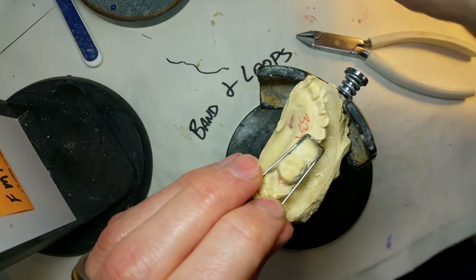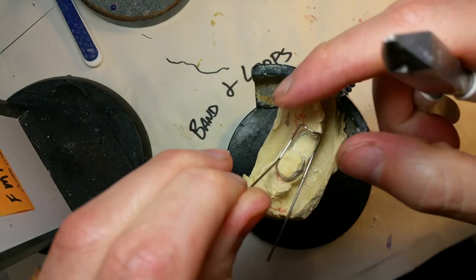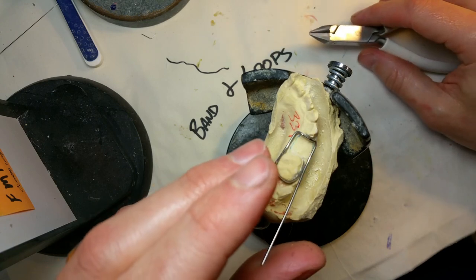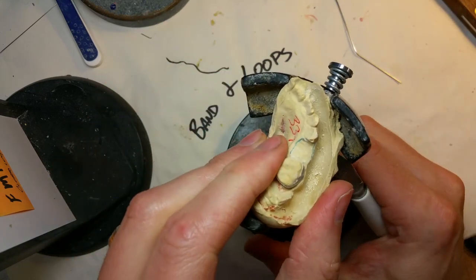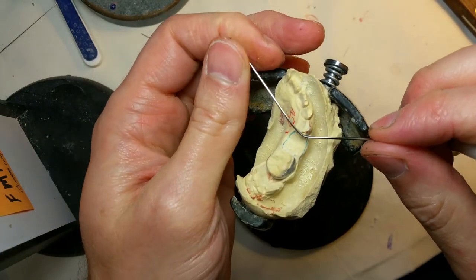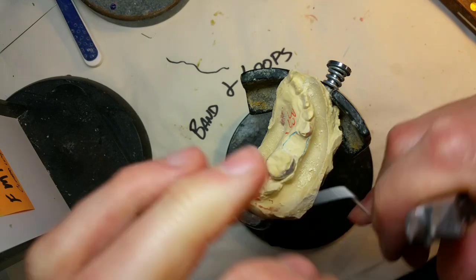You can see how big it looks. I'm making some final adjustments to make it hang and hold better. There's one version — it's almost straight back. I do put a little curve in it just to hug the tooth a little bit, so it doesn't move back and forth very much. I go lingual and buccal of the tooth where it touches last, and then straight back toward the band.